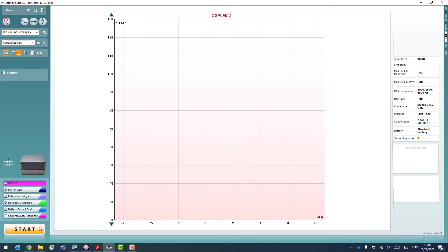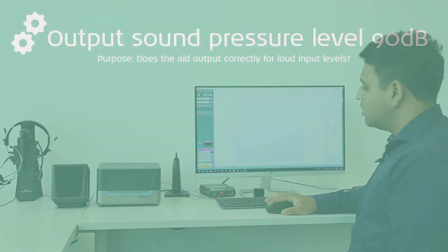The process is automated. Because the protocol is set against the standard, the test parameters are predefined, so it's just a case of hitting start and letting the test run through. The system will also alert me when I need to swap it to reference test gain, and I'll do that when that happens.